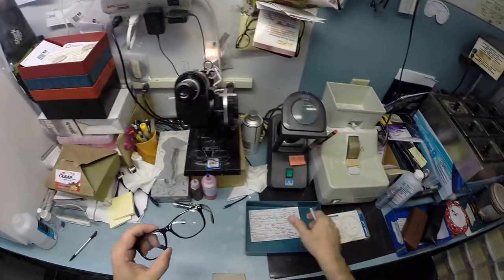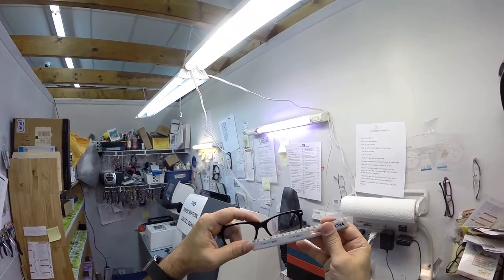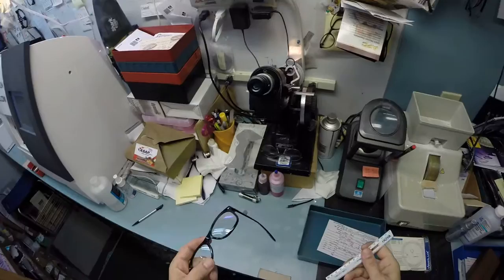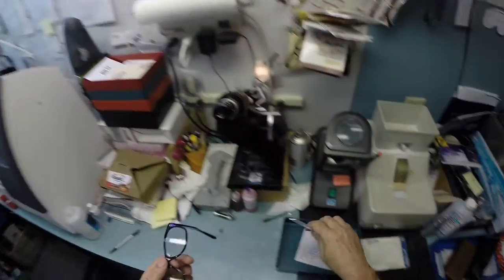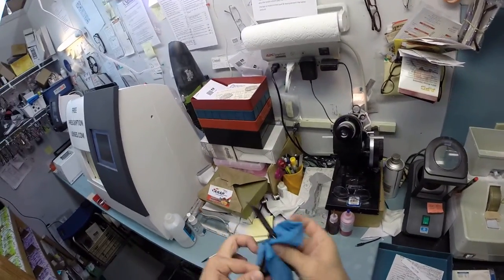I do want to measure the pupillary distance, which is 65, which I measure from the corner of one bifocal to the corner of the other, and we're getting 65 millimeters. So that is made perfectly. I want to check the bifocal height. We're at 16 there.